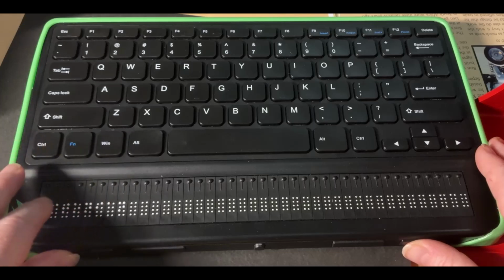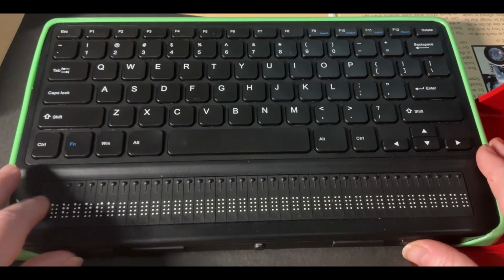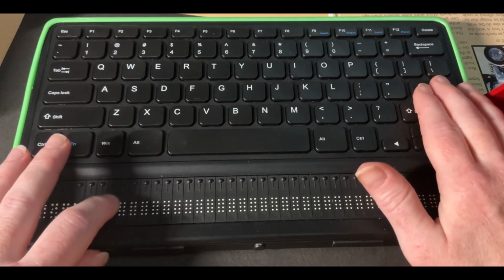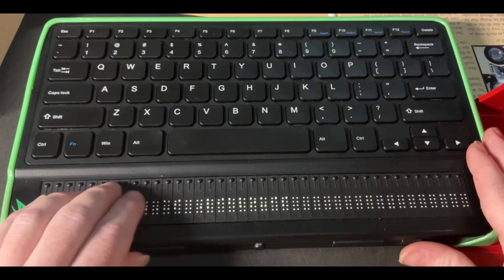So here's Estonian, and here's Farsi. I'm not sure what that is. So I'm going to go back to English because that I know. So I'm going to go back to where it says English, and I want to press enter or a cursor router to confirm. And now it says it's going to give me another choice.